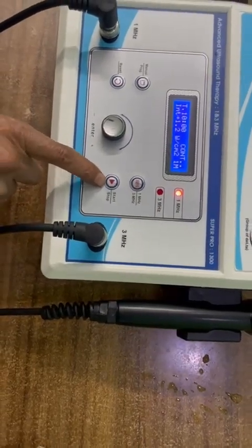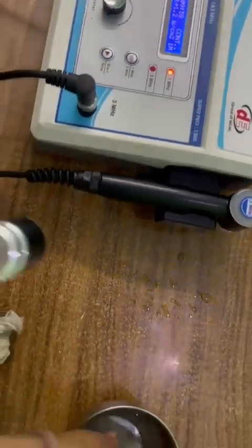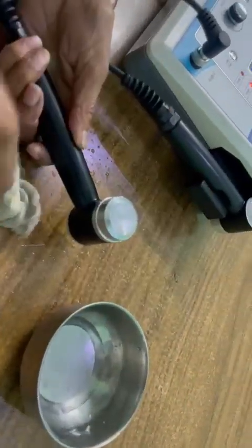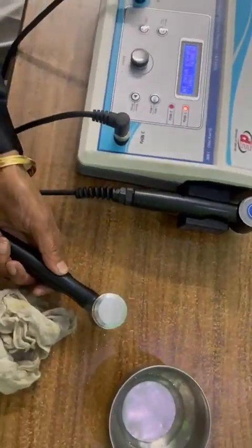And now press start or stop button. Now we can test in program mode. It is working. You can increase or decrease.